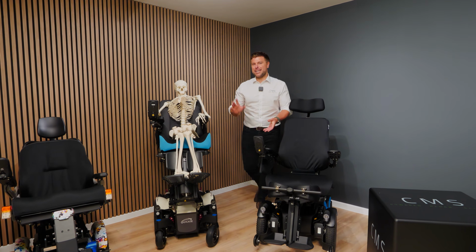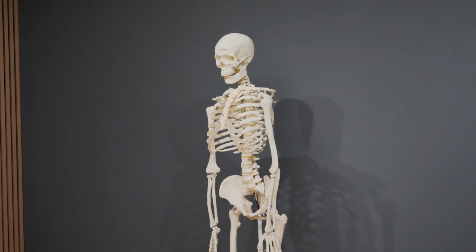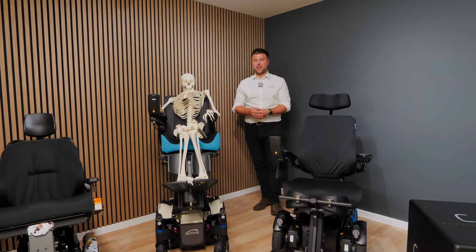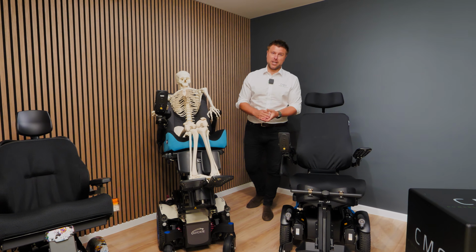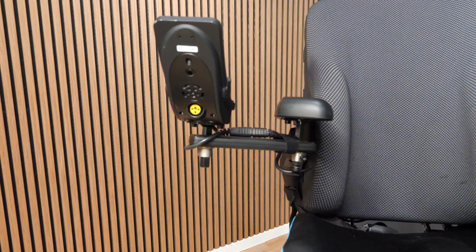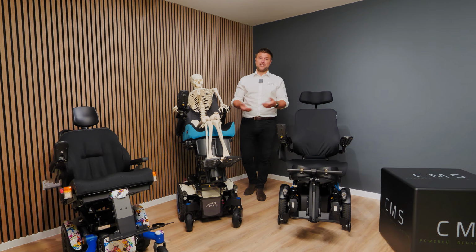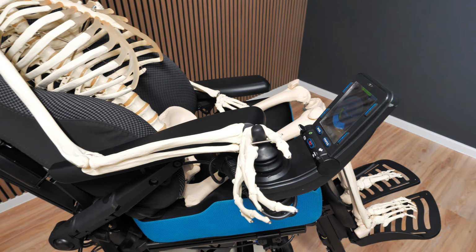In this video, I'm going to be using our resident skeleton Sid to help demonstrate and visualize for you guys the effects of poor positioning. We're going to be focusing on 4 main areas today: armrest height, leg rest height, backrest angle, and controller position. Naturally, there are lots of other variables that can affect poor positioning or how you control and drive the chair, but they're the 4 we're going to be focusing on today.